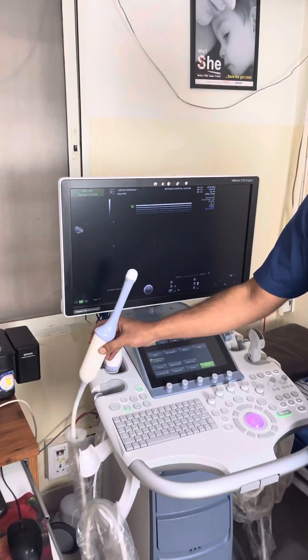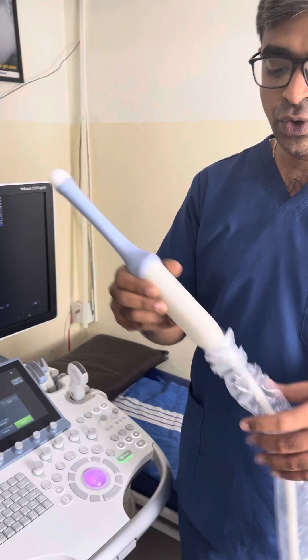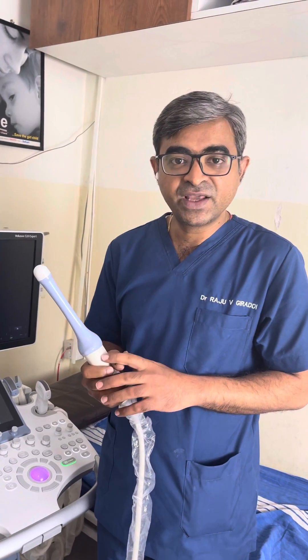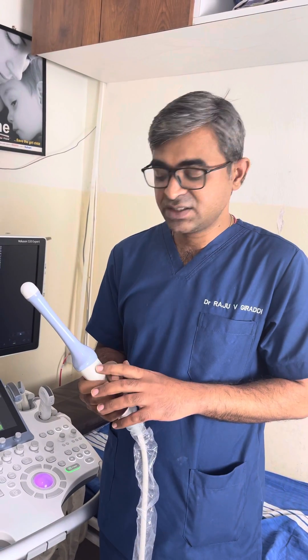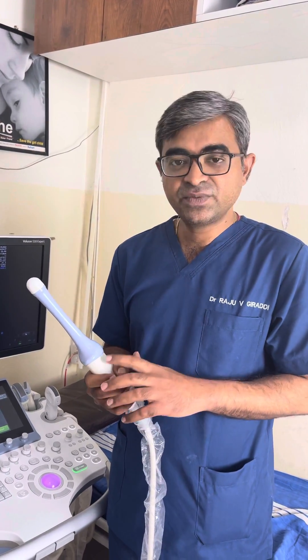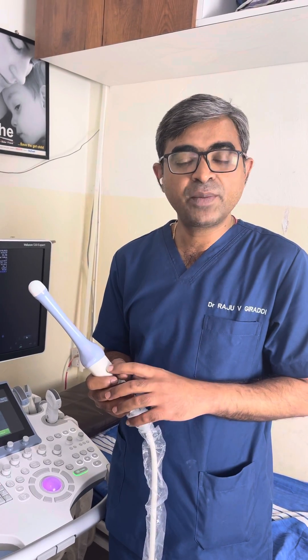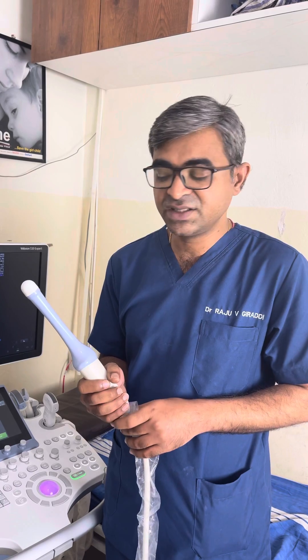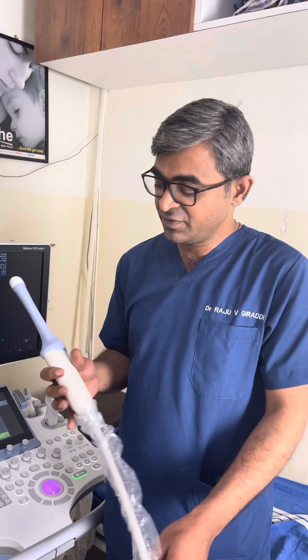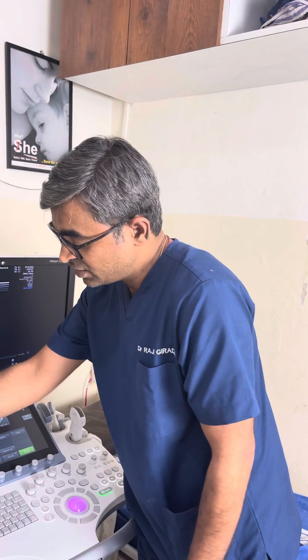Similarly, we have what we call endo probes, or for us, the endovaginal probe. These are also higher frequency probes, ranging up to nine to eleven megahertz. Having higher frequency means near-body parts are well imaged, and that is why transvaginal sonography plays a very important role in dynamic evaluation and understanding anatomy better with the transvaginal probes.